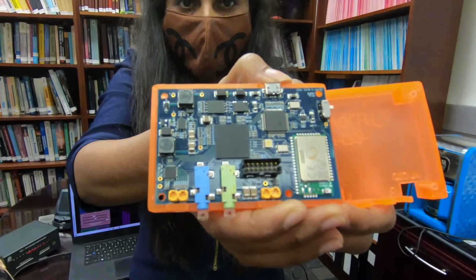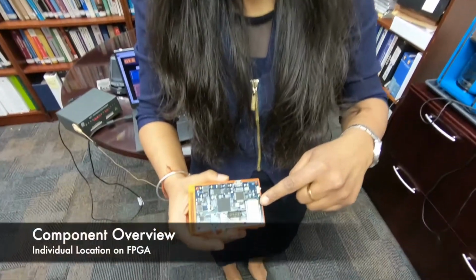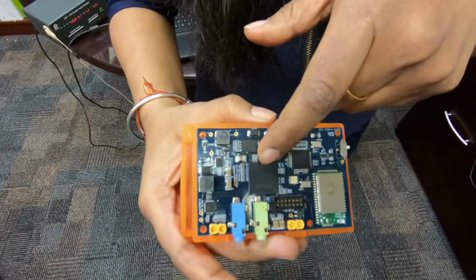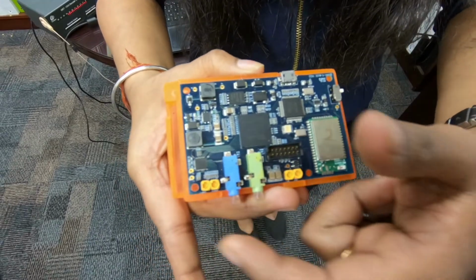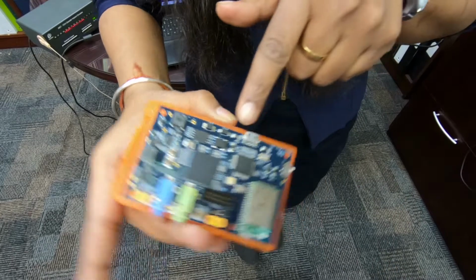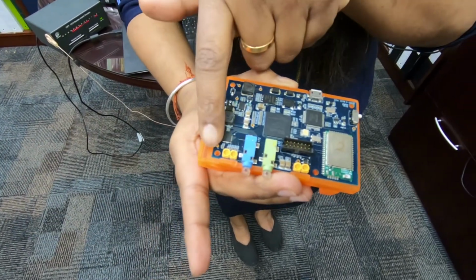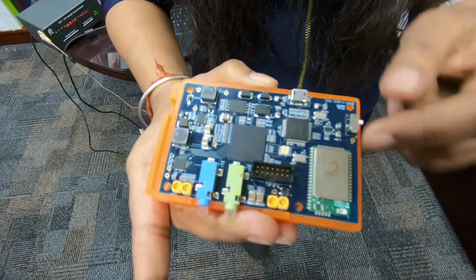This is a compact design for the CCi-MOBILE Research Platform. It has an onboard Wi-Fi module, a Spartan 6 FPGA, an audio input, RF output, headphone jack output, a micro USB port to connect with the PC or a smartphone, an audio codec, and a wireless switch for communication between USB to Wi-Fi.